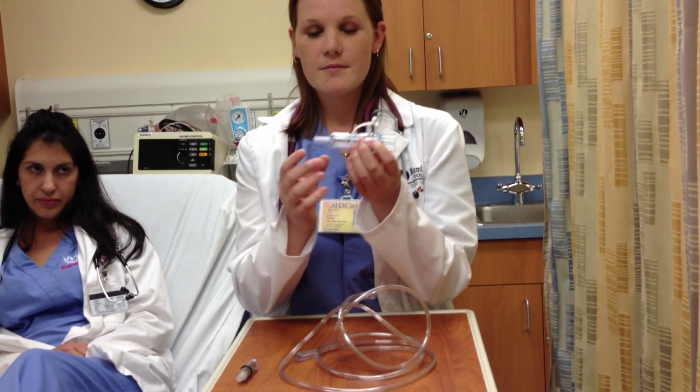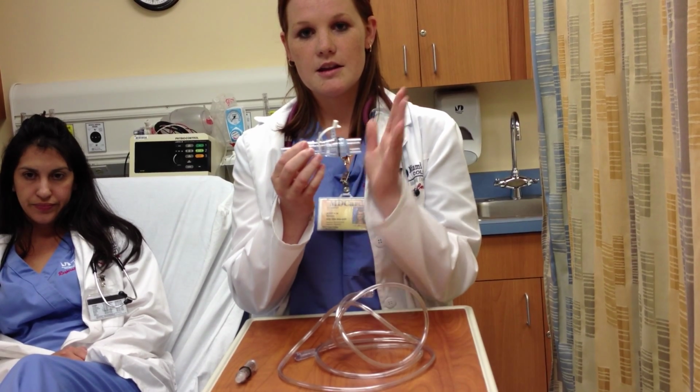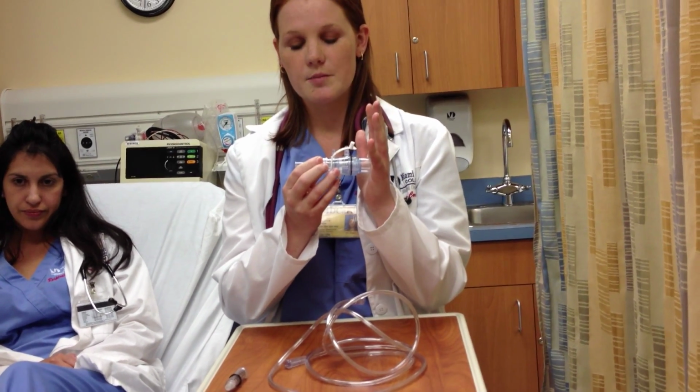Now that you know the indications, the contraindications, and the hazards, I would like to show you the Easy PAP. This is the Easy PAP. This is the mouthpiece that the patient will be placing their mouth around. This is the ambient. Never occlude the ambient because your patient will not be able to breathe.